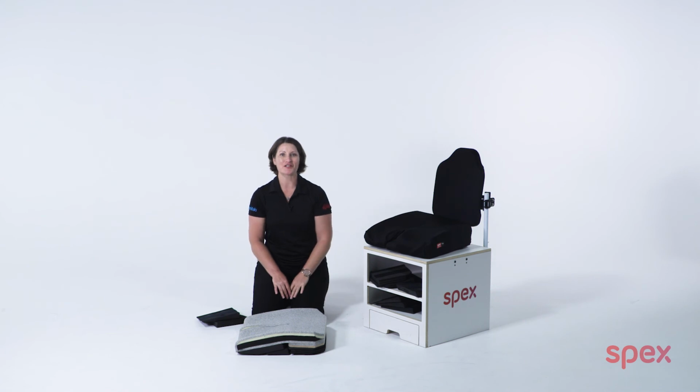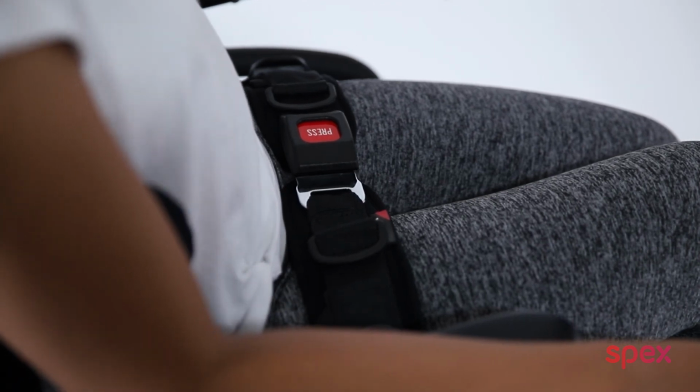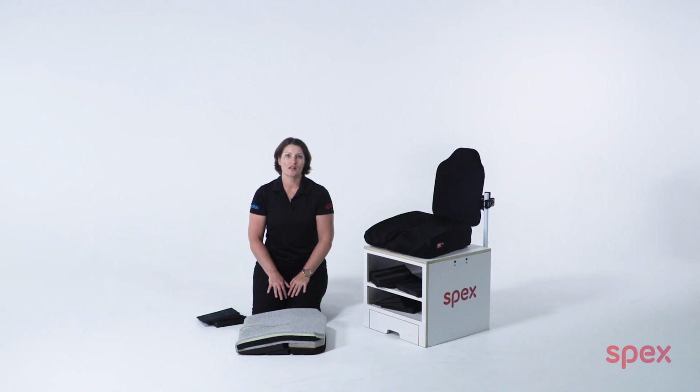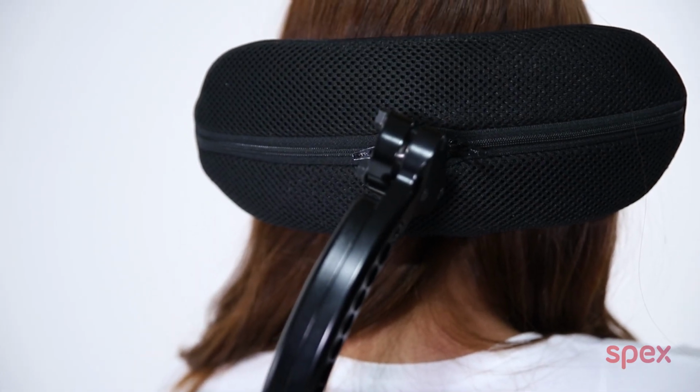You can look at another video for this. We also recommend an anterior pelvic positioning belt to support the pelvis location on the cushion and to ensure stability. Tilt is recommended in the wheelchair base to support with pressure management needs, in which case a headrest will also be required for minimum effort and optimized alignment in a tilted position.